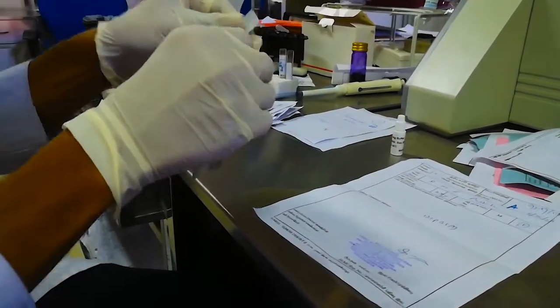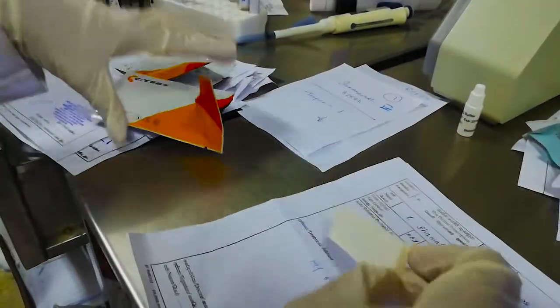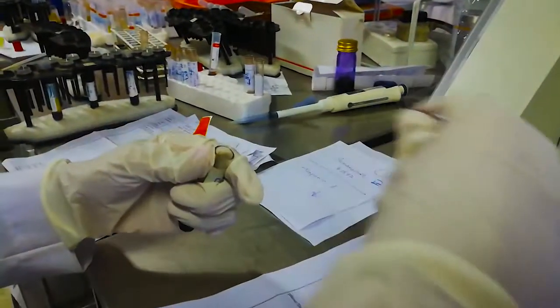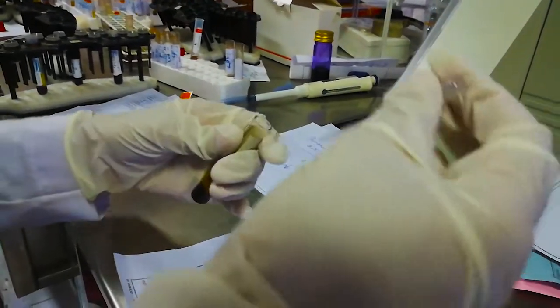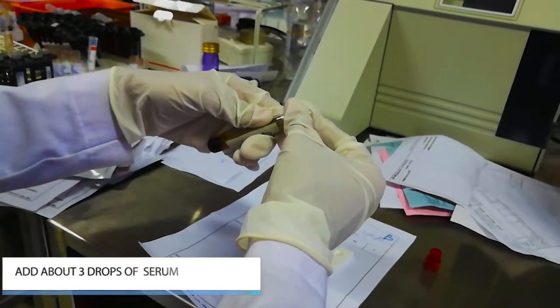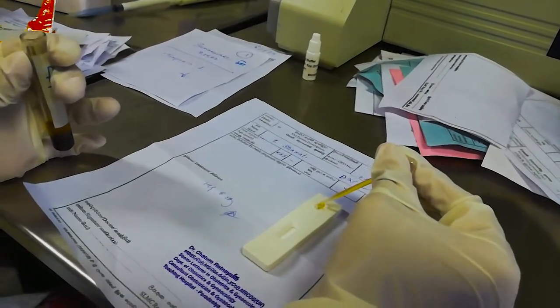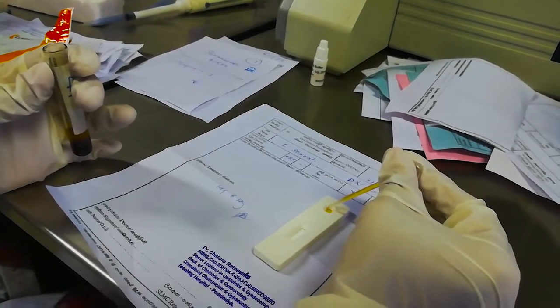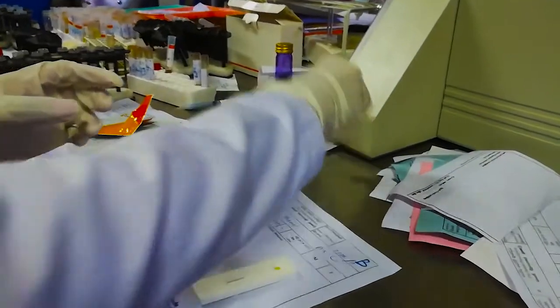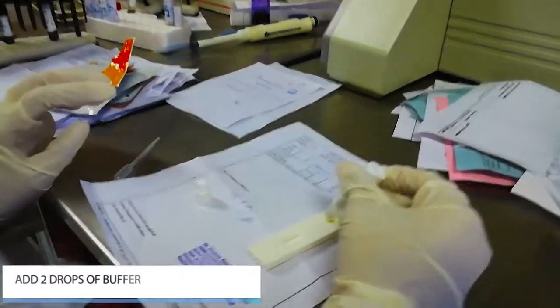Take the cassette and dropper out from the sealed packet. Add about 3 drops of serum to the sample adding area using the given dropper. Then add 2 drops of buffer.